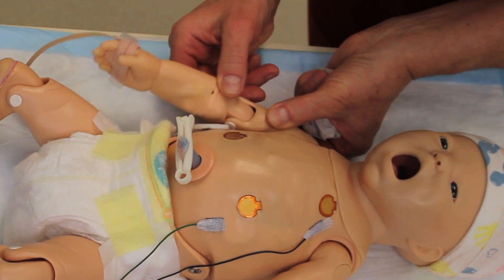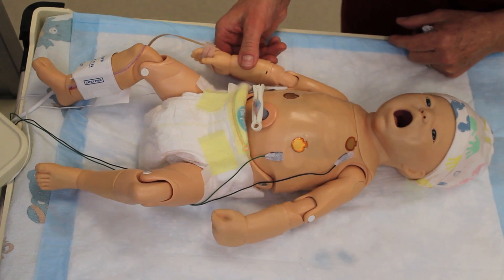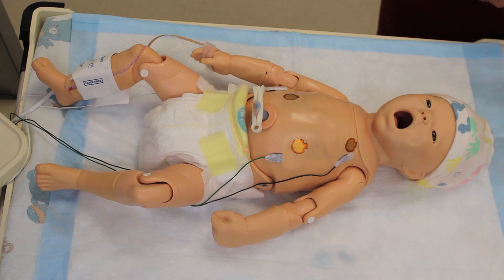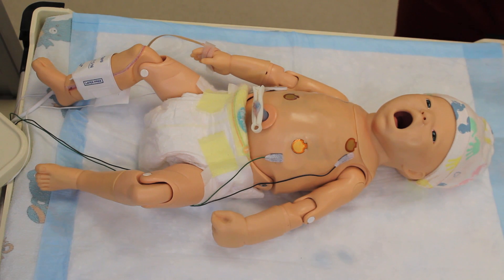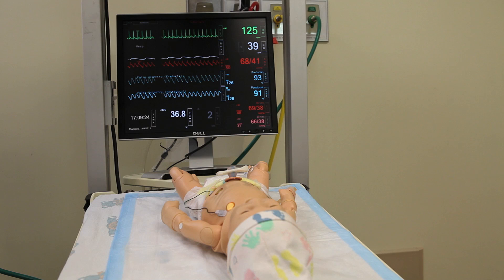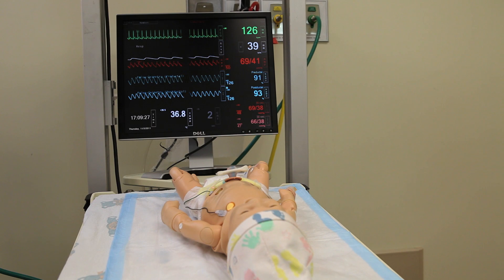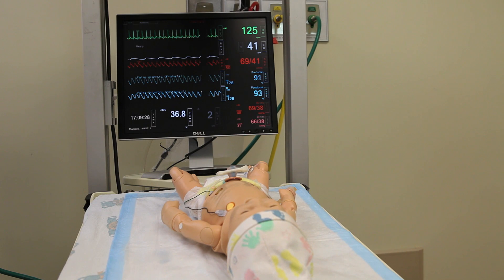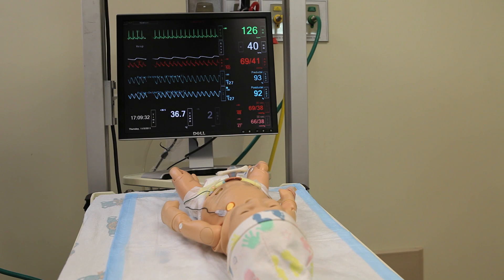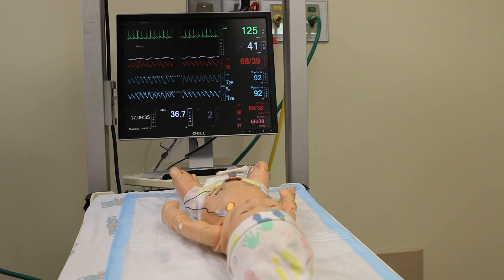We can also turn the left or right-sided pulse off. For example, if we were doing a scenario that involved a critical coarctation, we may turn off the left pulse but leave the right pulse, and you can use that as part of your diagnostic evaluation. Another unique feature of this mannequin is that as the blood pressure gets lower and lower, the pulses get weaker and weaker.